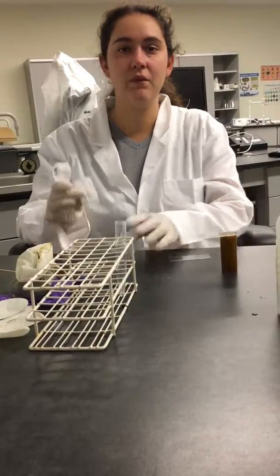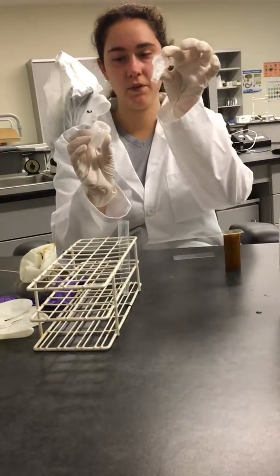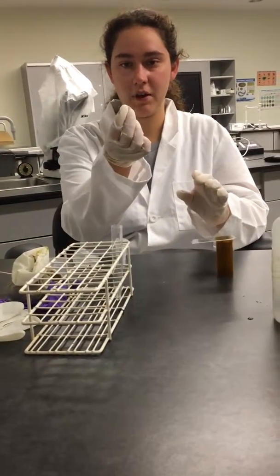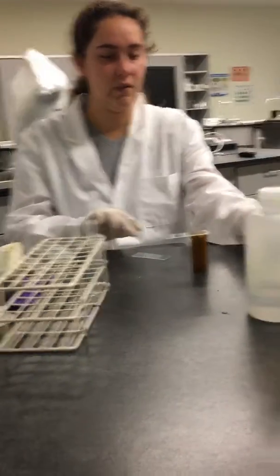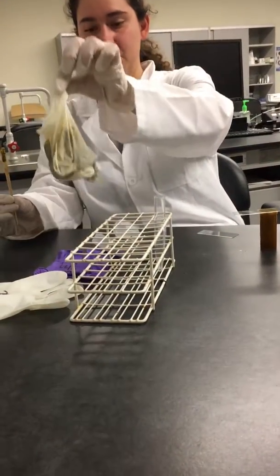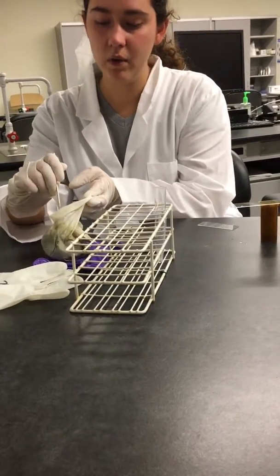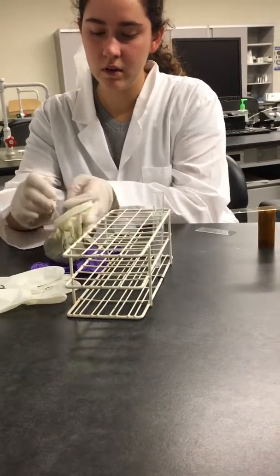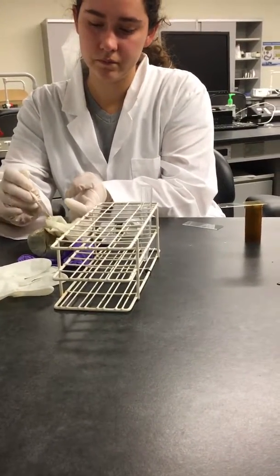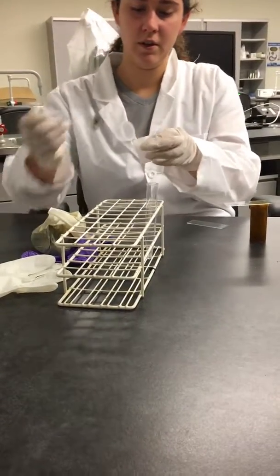Okay, so this is going to be a fecal float filter. So we're going to have our little filter cup, the filter that goes inside. We're also going to have a microscope slide, and then the cover slips. We got our poop sample and our little stir stick. So we're going to get a gram for this sample. Somewhere around there, lots of hair in this one.